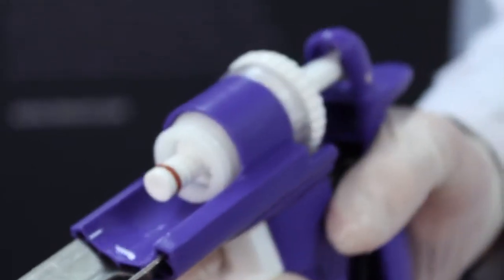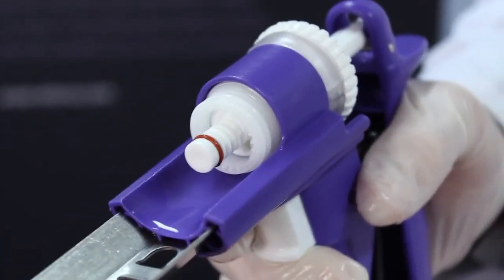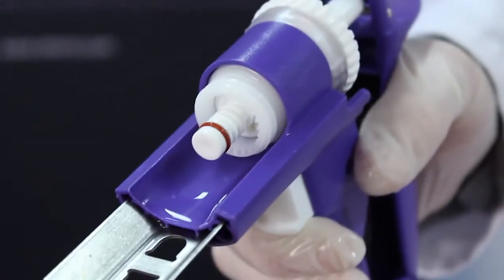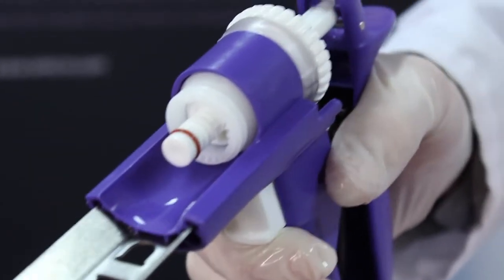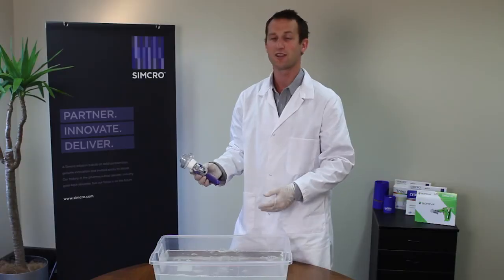After a prolonged period you might want to replace that o-ring — we do supply a spare. So with a pair of tweezers or even with your fingers, this is a little bit fiddly, just roll that o-ring off the end and roll the new one on. Then obviously the barrel goes back on in the reverse format — pop that on nice and square, use the nut to tighten that up, and we keep that nice and clean and ready to use next time.